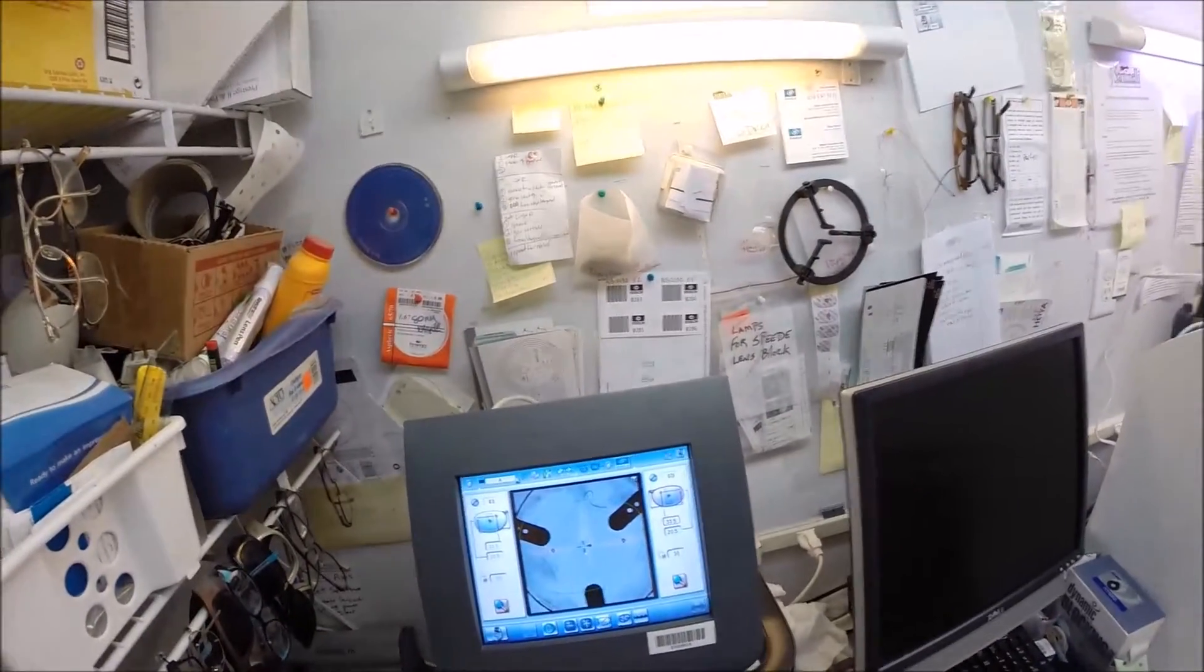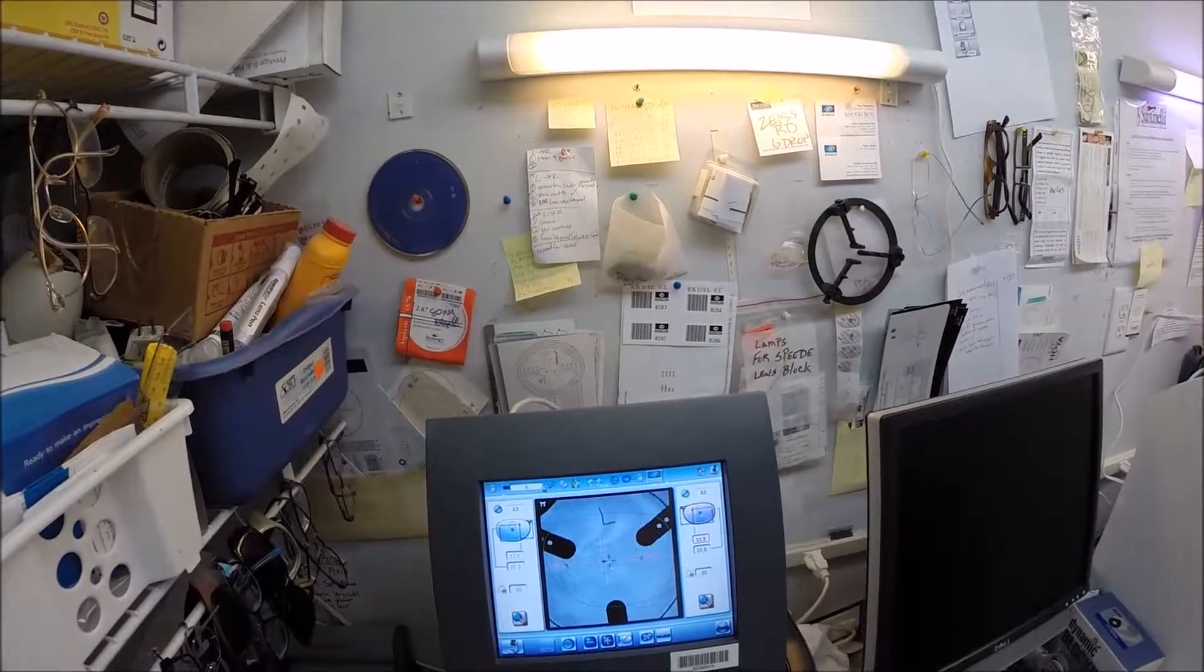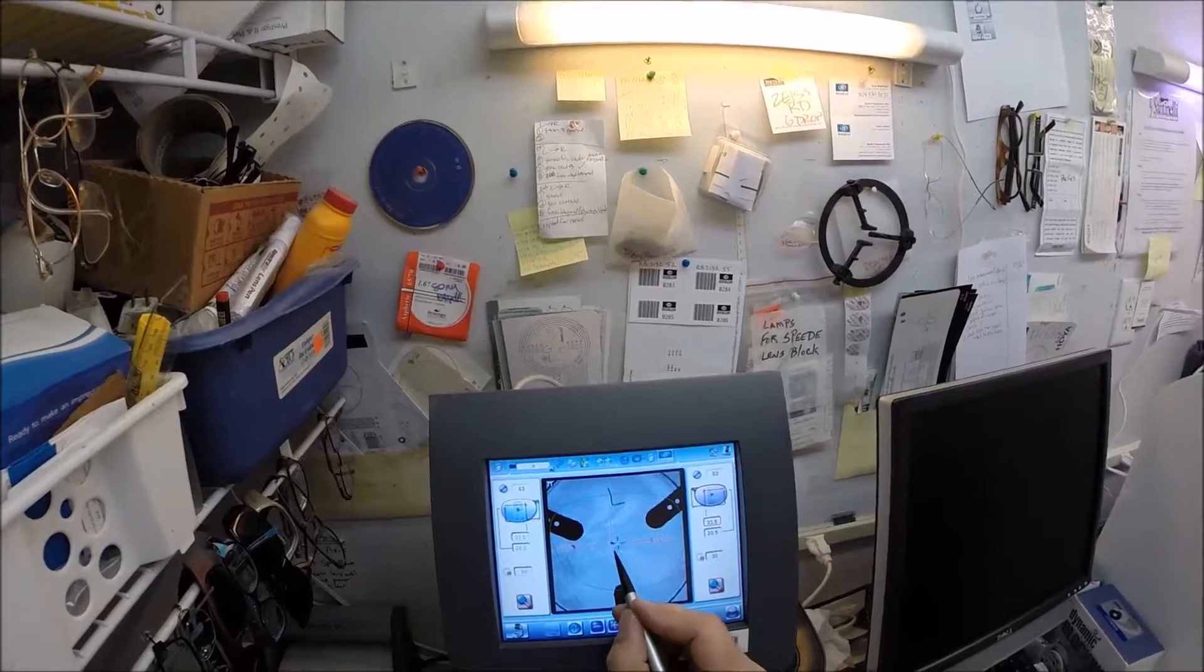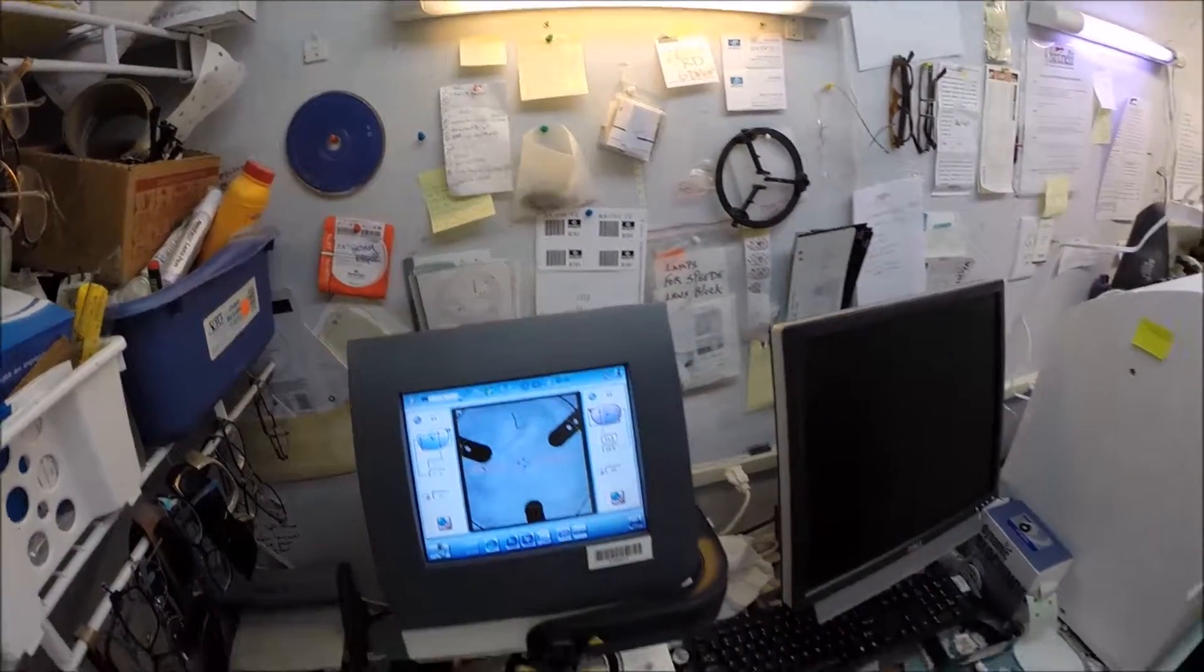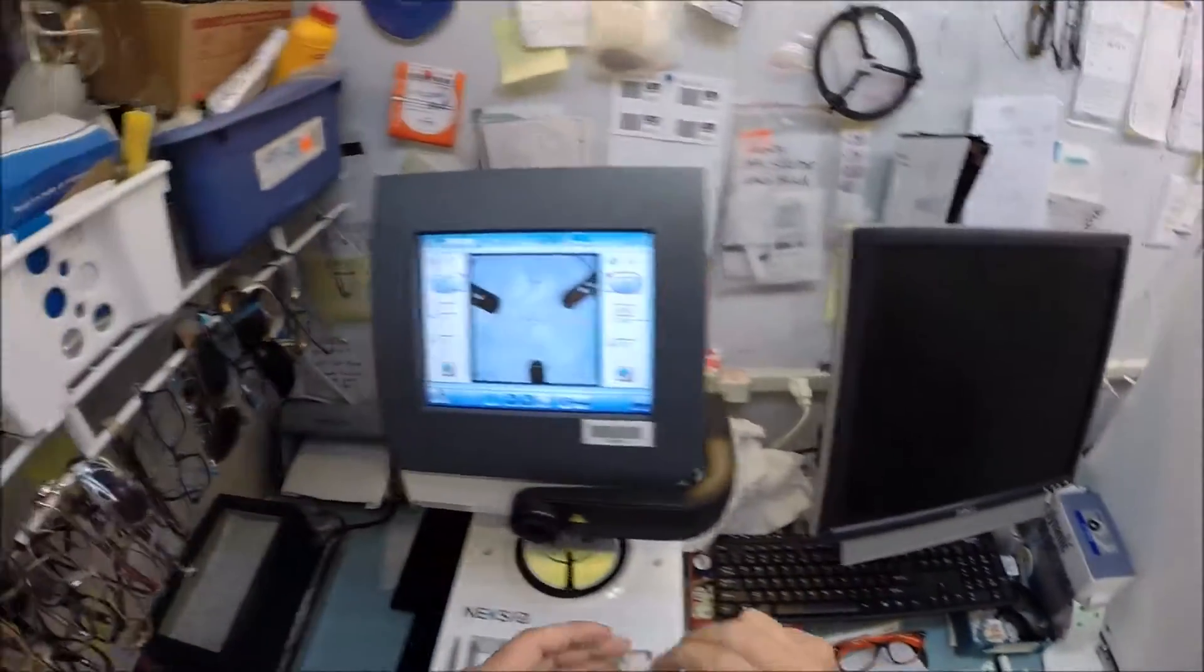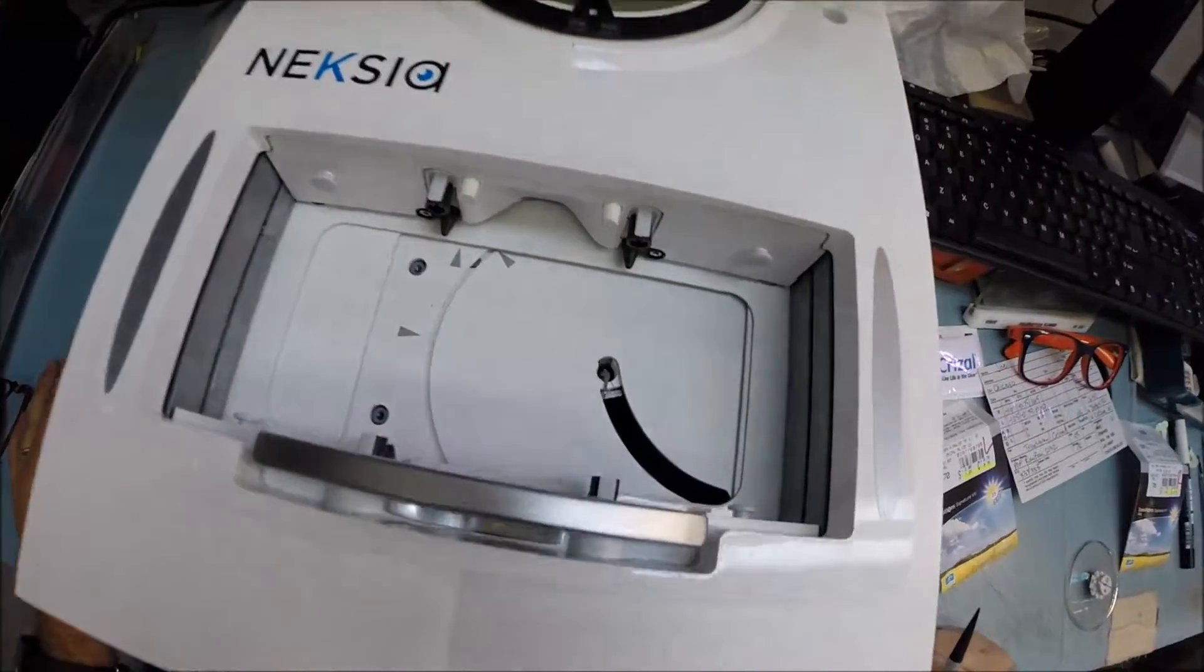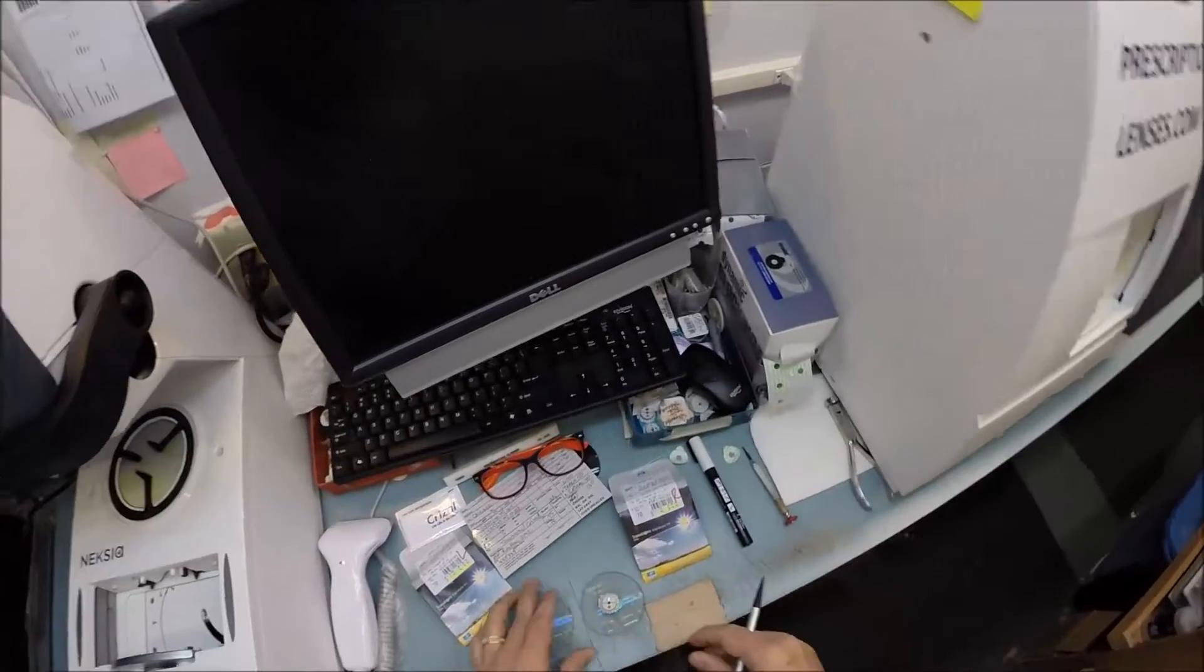I'm going to do the same thing now for the left lens. This automatically flips over and gives me the same pupillary distance on the other side. I'm going to get these lined up just right. This again is your optical center, and these dots on opposite sides show it's lined up perfectly.